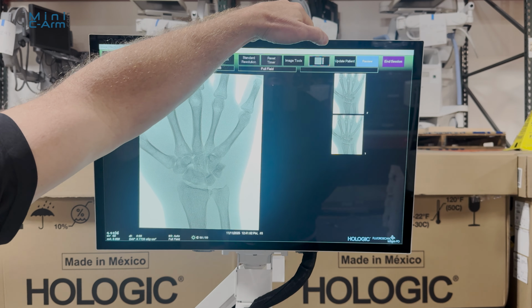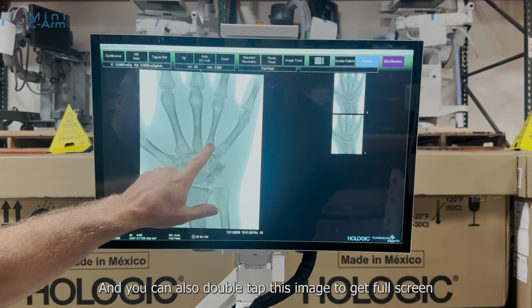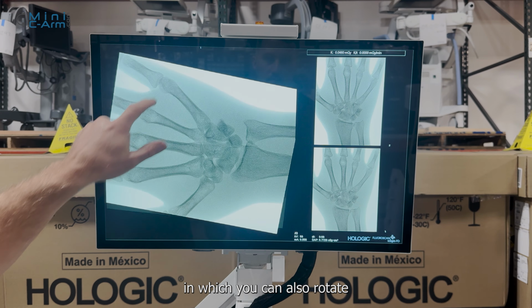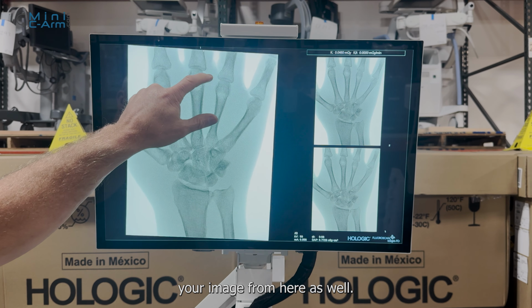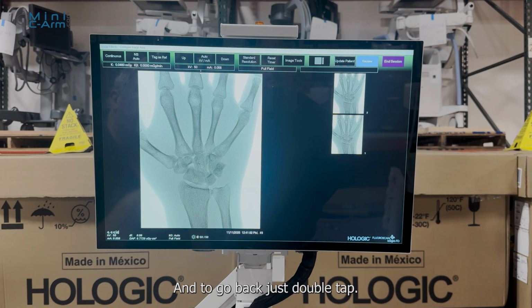And here you can update your patient information right on here, and then you can cancel out of that. And you can also double tap this image to get full screen, in which you can also rotate your image from here as well. And to go back, just double tap.